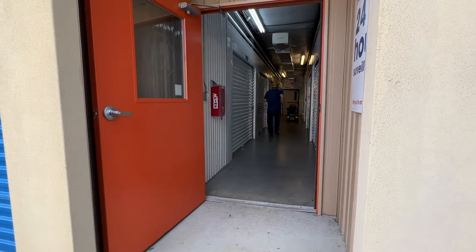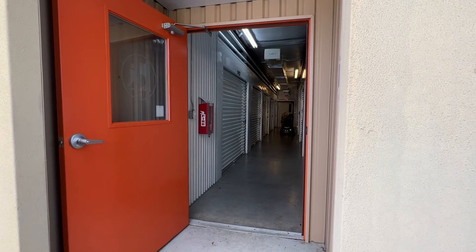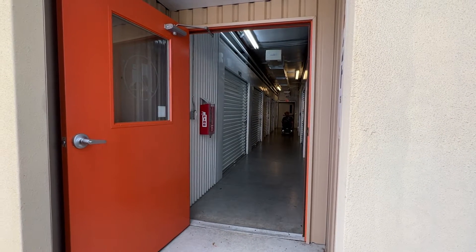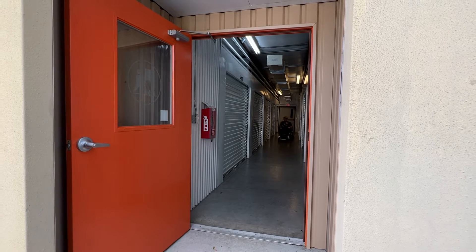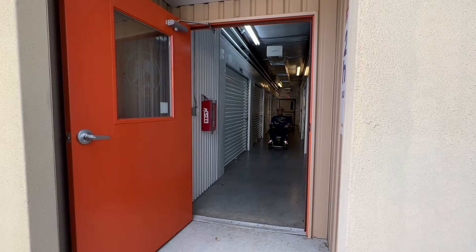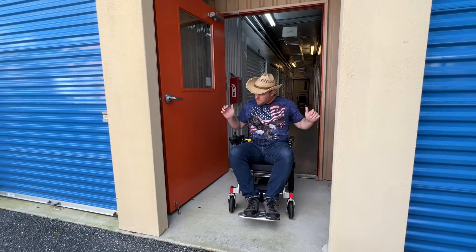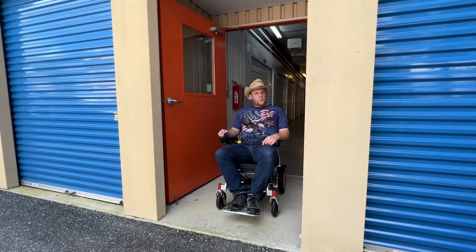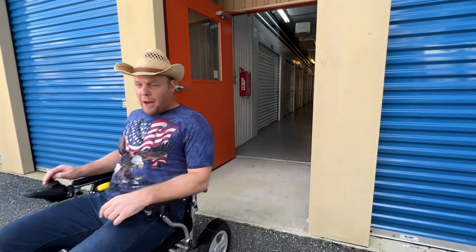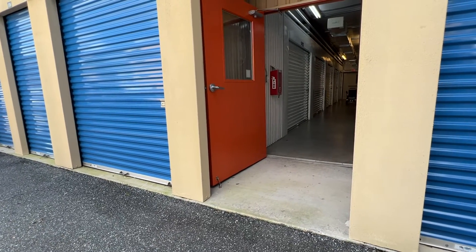We've got the Falcon. A little bit further back so I get even more momentum with this one. I'm going fast, I can feel it — full cruising speed and same braking time. Full speed to brake in about four feet — about four feet to a complete stop from full speed.